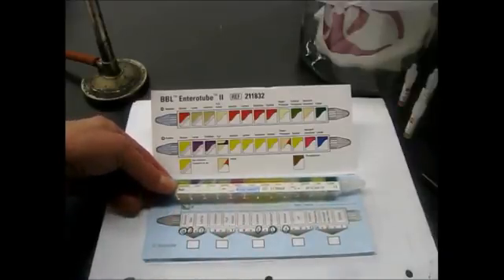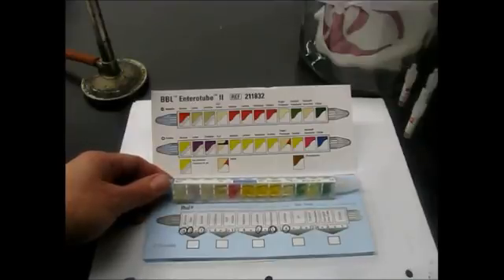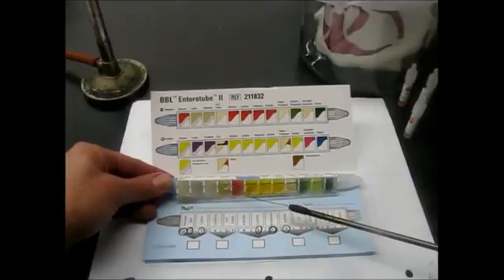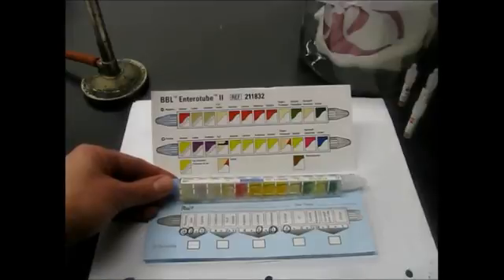So those are the two chambers I'm going to burn a hole in, and I'm just going to heat up my inoculating loop. This does not have to be sterile, because we are no longer going to incubate our Enterotubes or anything. We're just going to use it to break through this covering on each one. So if you just heat it, it just melts right through the plastic.